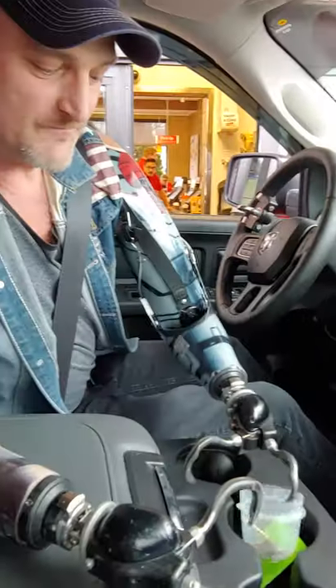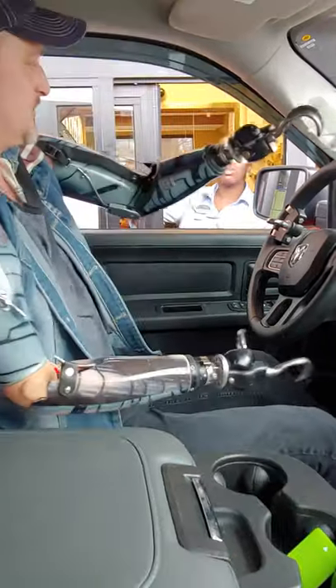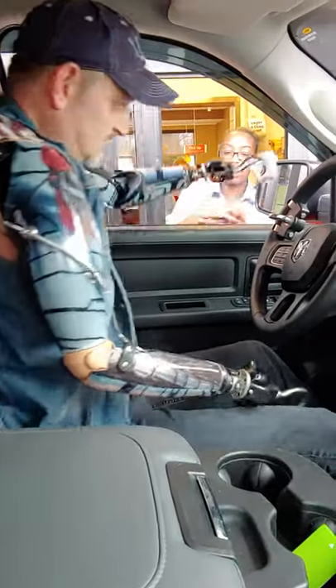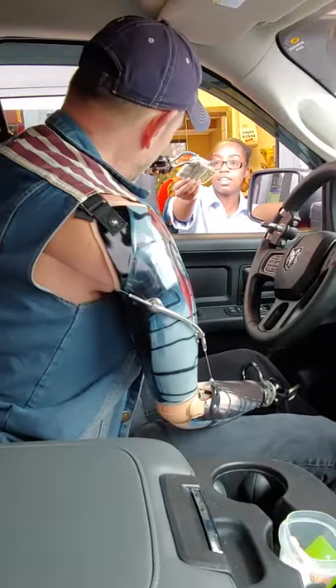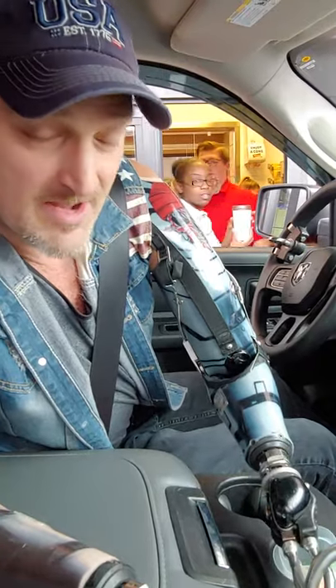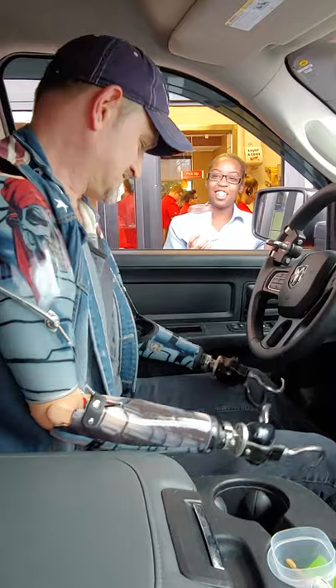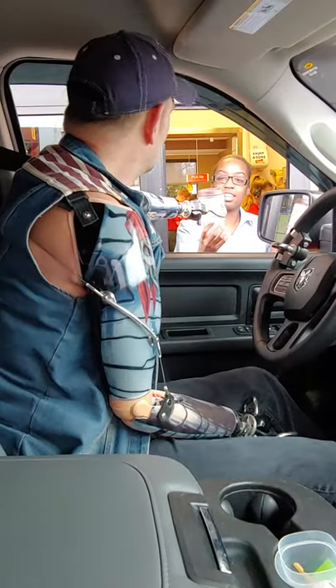What I do is I change — yeah, I can grab that and I'll just reach out here and grab the cash. Bam! Let me check on that coffee for you! I'm gonna show you how to grab this coffee and slide it on up in the coffee holder. There you go!